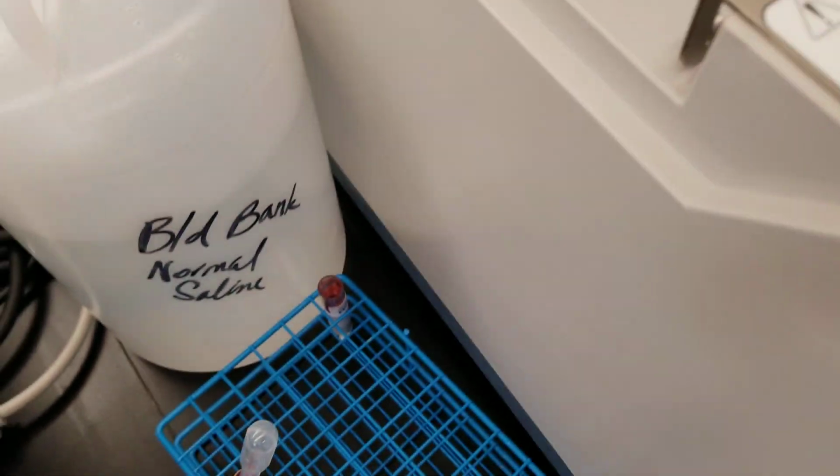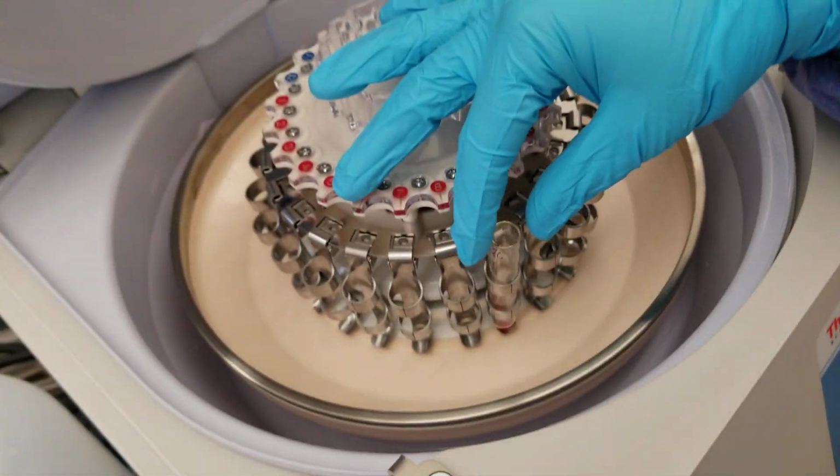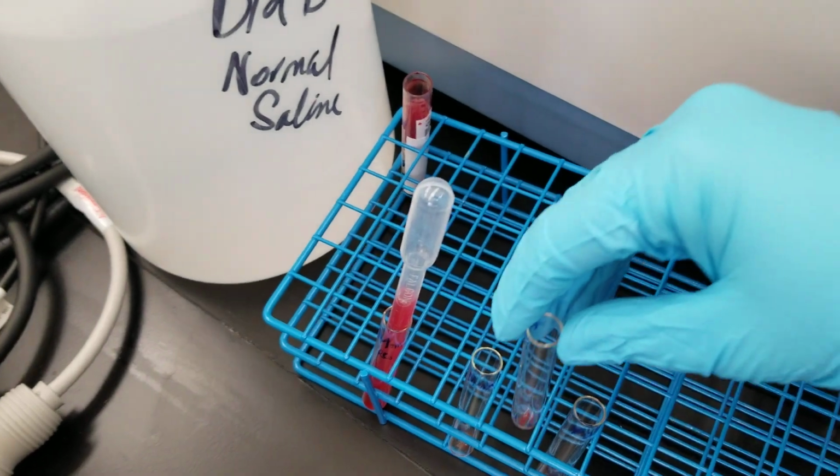There's mom. That was negative QC. And we have positive QC. Okay.